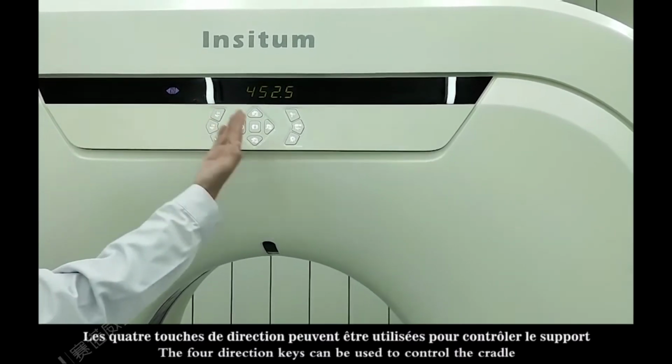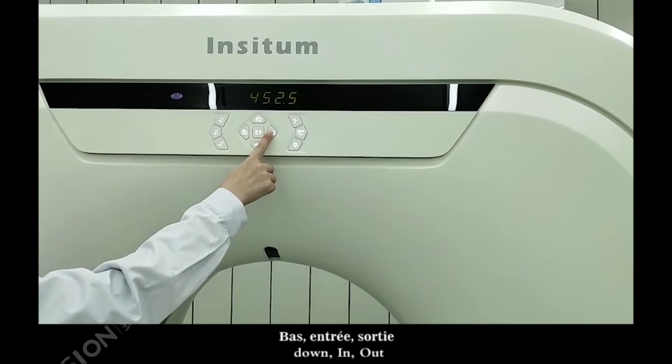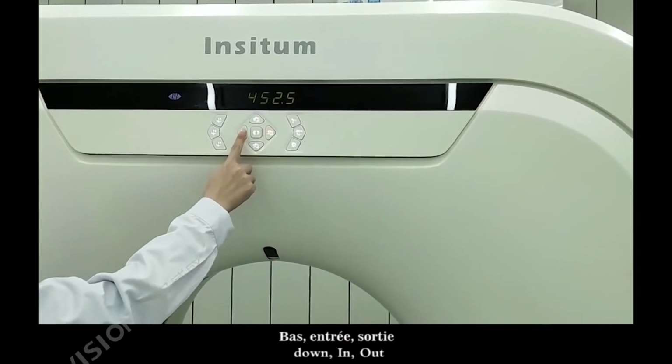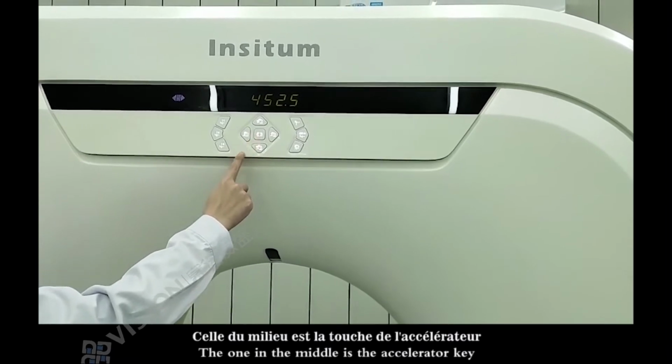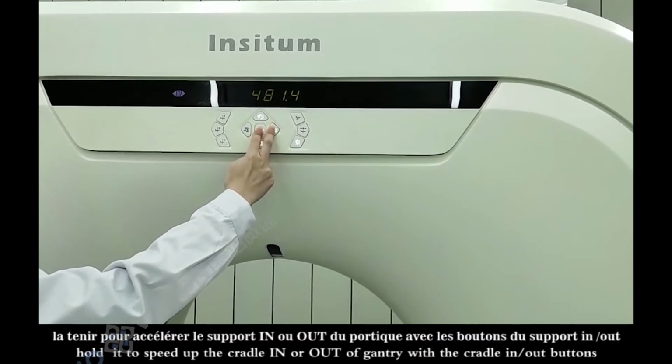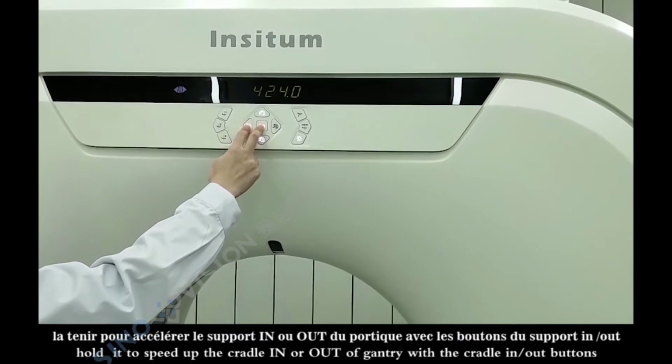The 4 direction keys can be used to control the cradle: up, down, in, out. The one in the middle is the accelerator key. Hold it to speed up the cradle in or out of the gantry with the cradle in, out buttons.